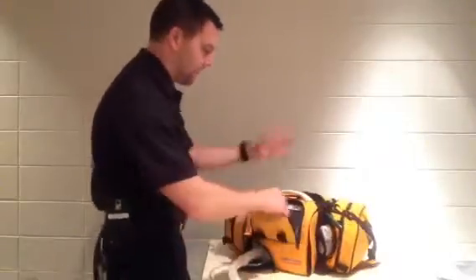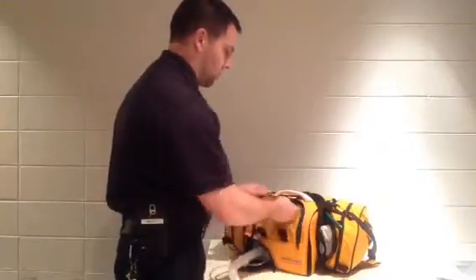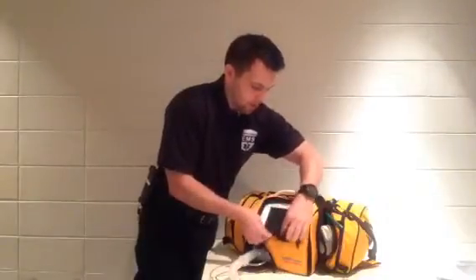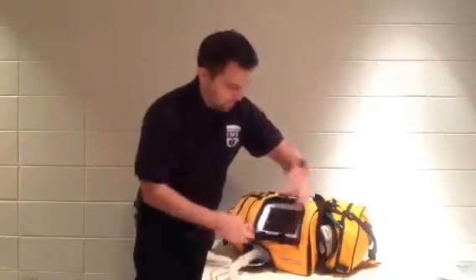Now this actually has a window. The case can come off but the window is actually designed to roll down real tight. It's got a velcro tab on the outside and the inside in order to keep the window open.